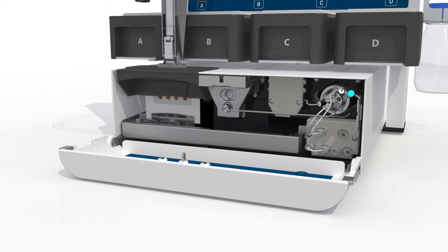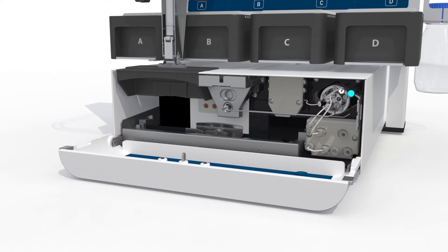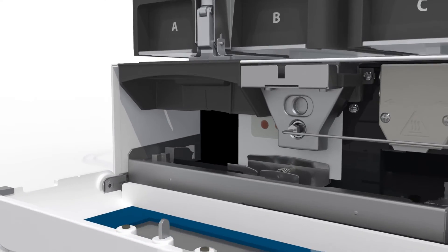The camera reads the barcode and locates the spot center for adequate positioning of the spot into the desorption clamp.